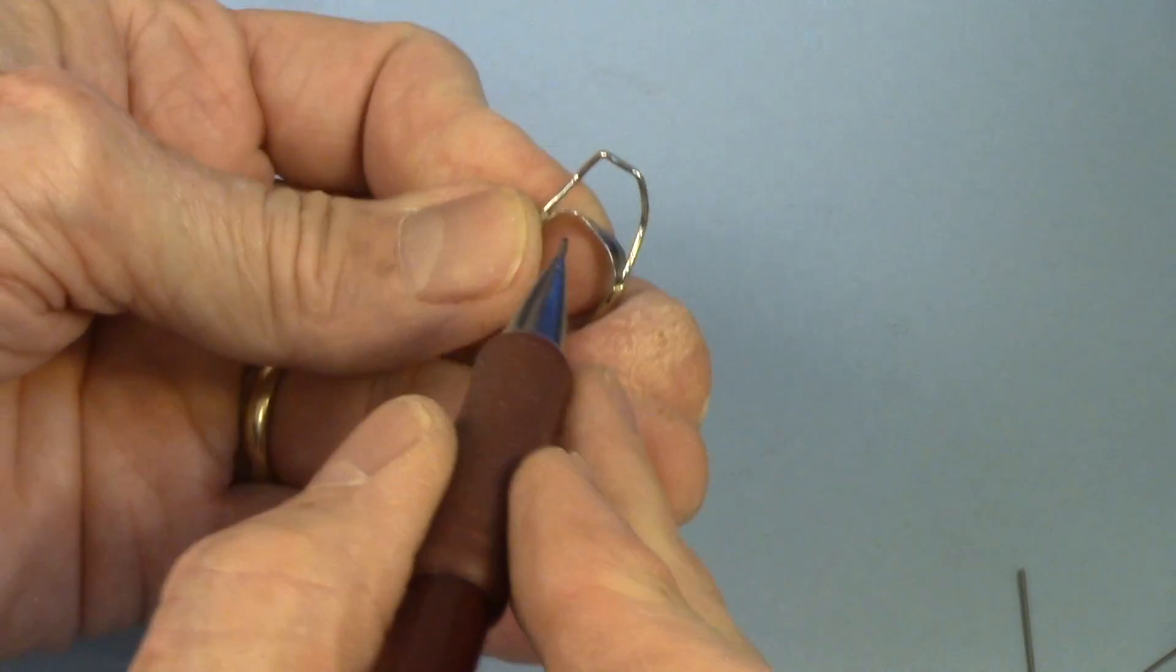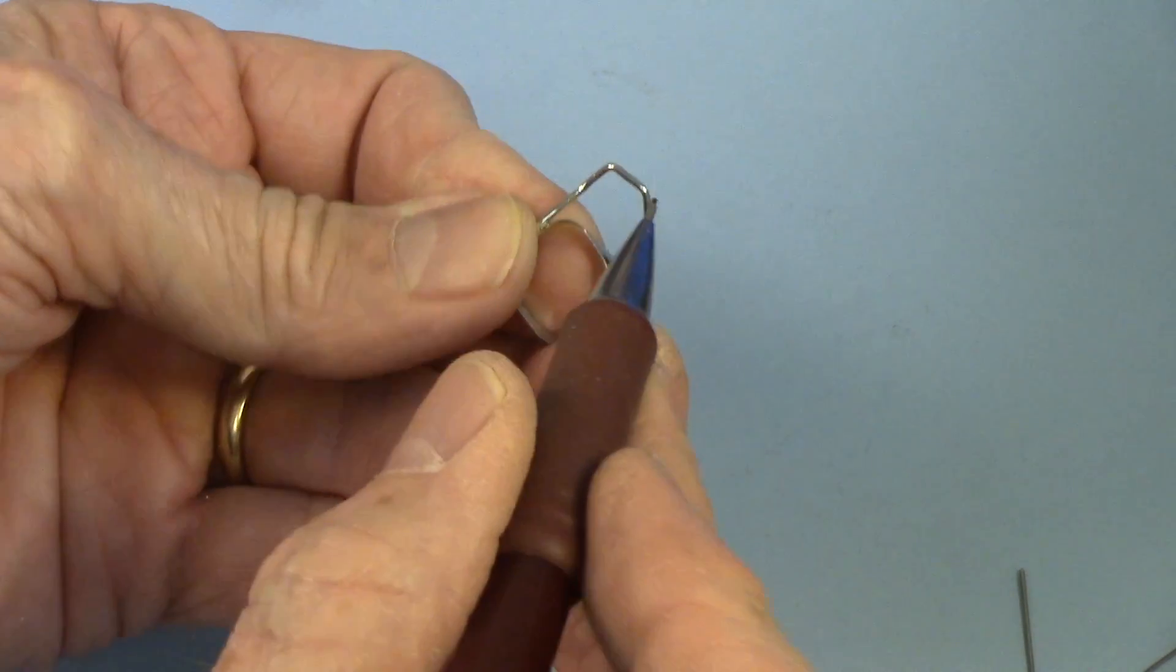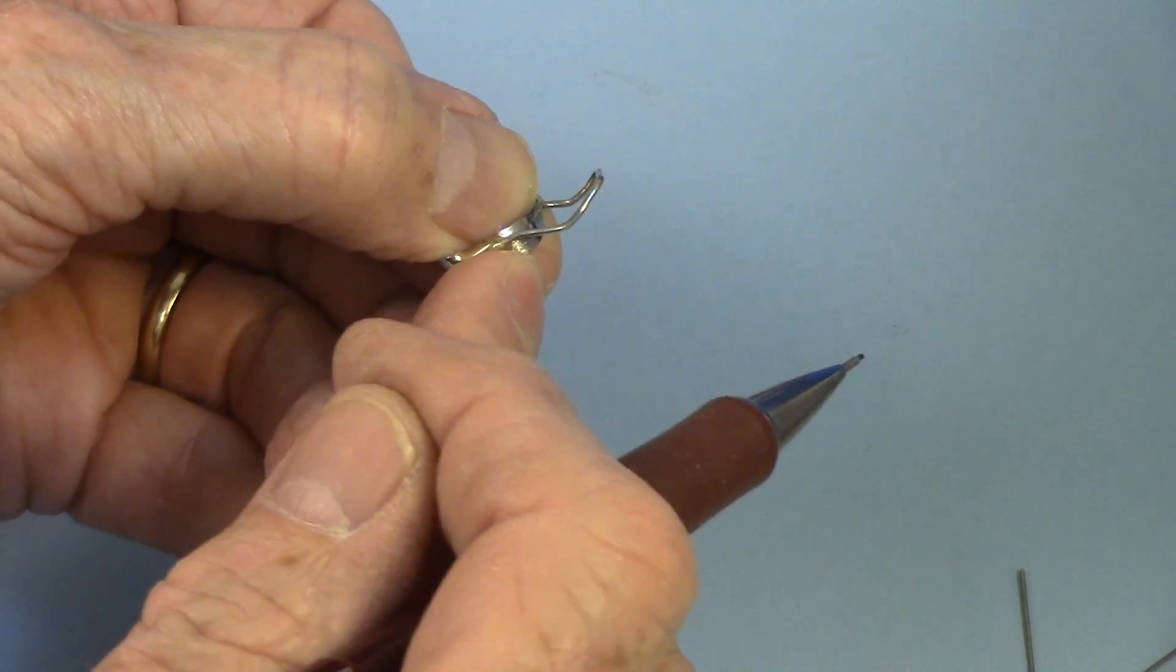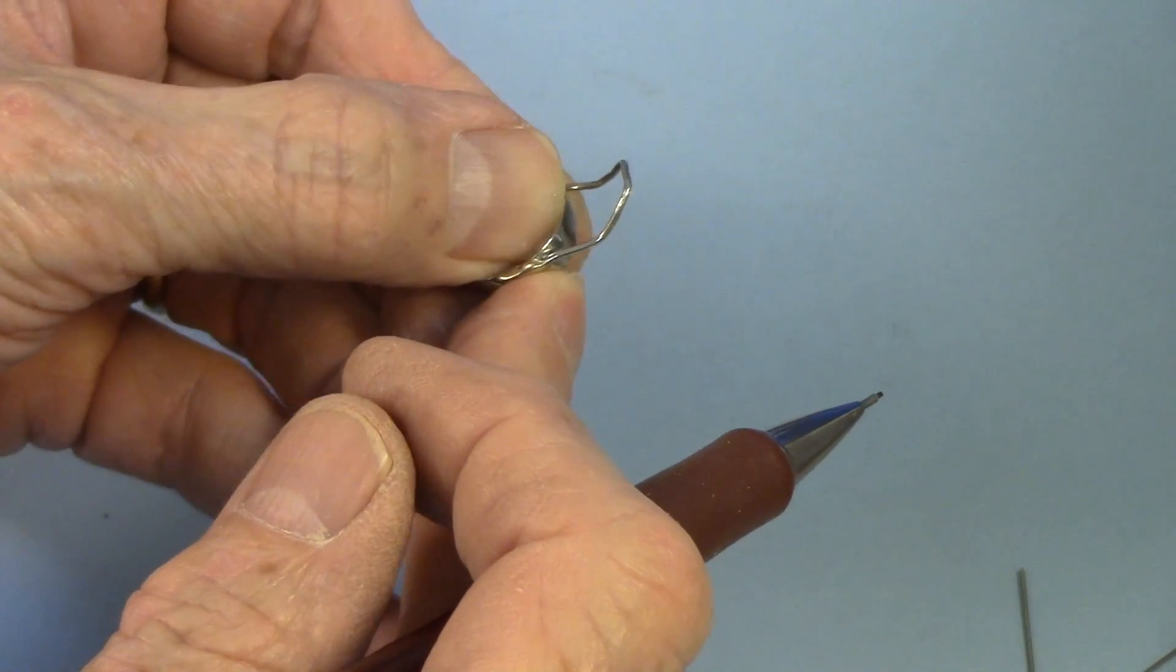But now, if you've got like a band and a loop, like this thing. You've got a short component of a wire. It's soldered on both sides of the band. Not much to it. You can step down to a softer wire. It's just easier to bend. And it's not going to matter that much.